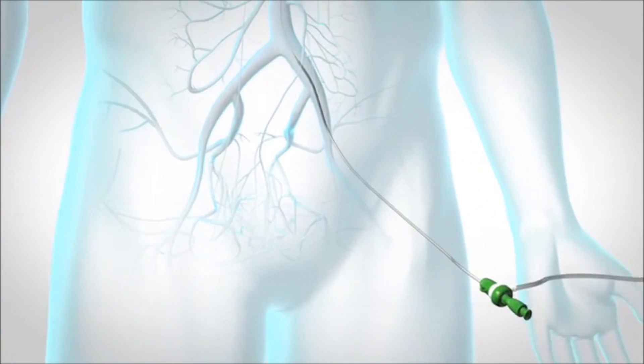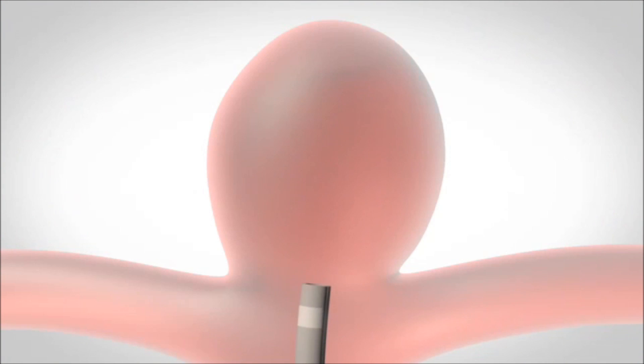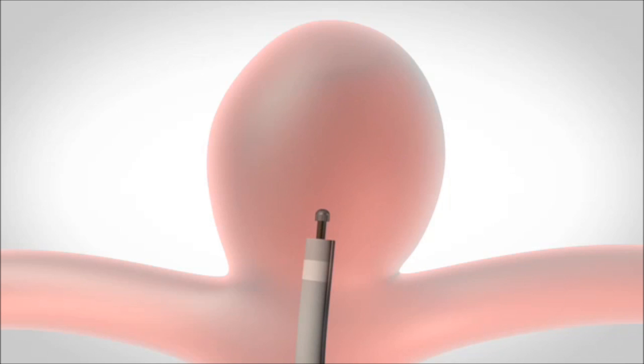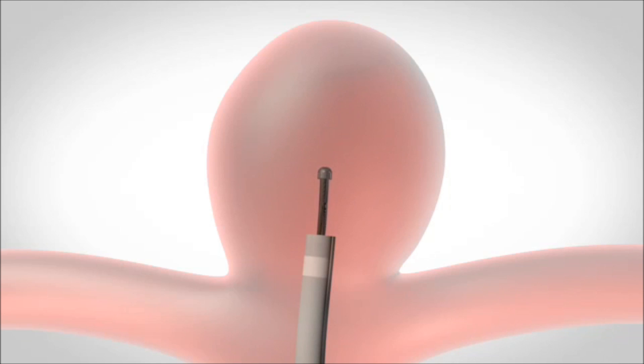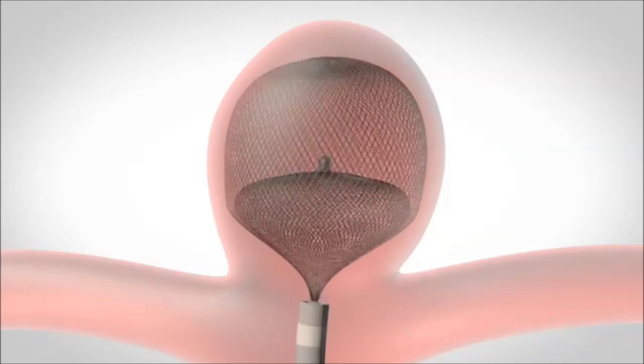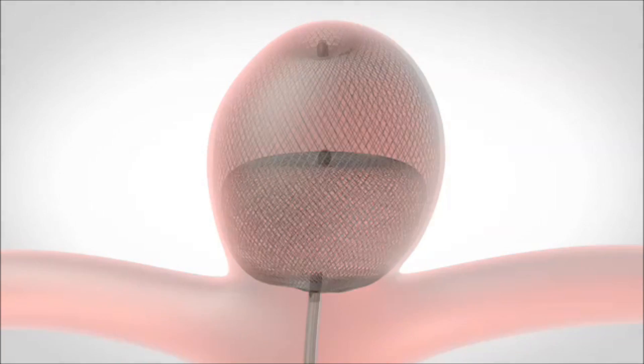The WEB embolization device is engineered for delivery through conventional microcatheters. After selection of the appropriate size, the WEB device is deployed in a stent-like manner within the aneurysm. Radio-opaque distal and proximal markers are used to confirm device position.